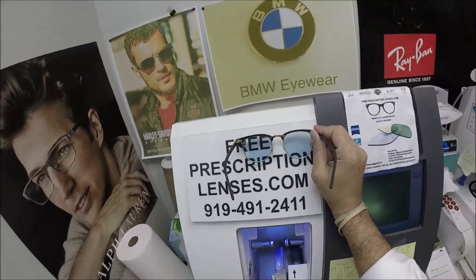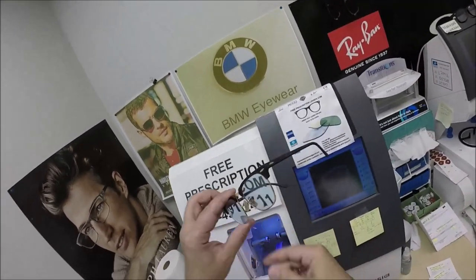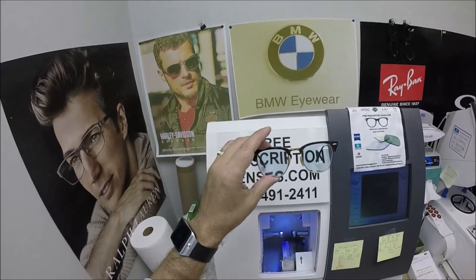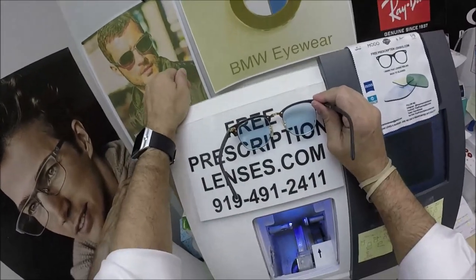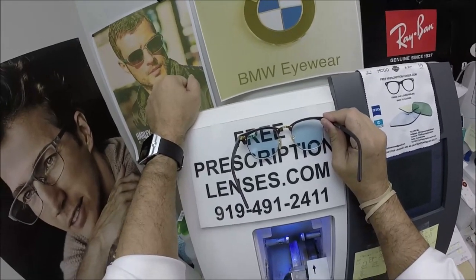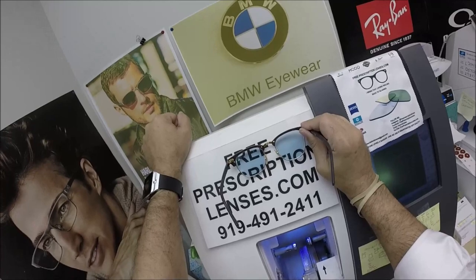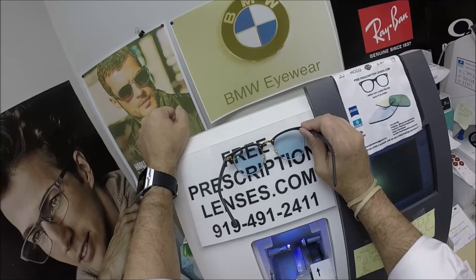Can I do it? Yes. Will I do it? No. People ask me: once the anti-glare or flash mirror goes on the lens, can I darken or lighten the tint? The answer is no. Because I can do something doesn't mean I always will. You have an idea of what a tint should look like in your head, and if it doesn't come out on my end, it's just one of those tricky situations. I've learned just to stay away from it. Eric asked if he could do it, and I hemmed and hawed and bit my lip and said, okay, I'll do it — he's light-sensitive.